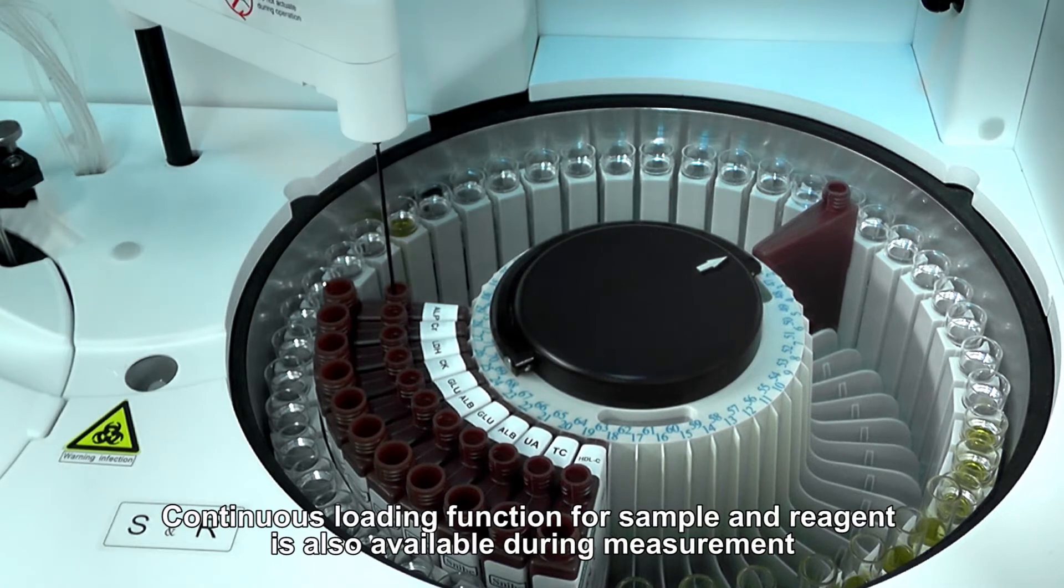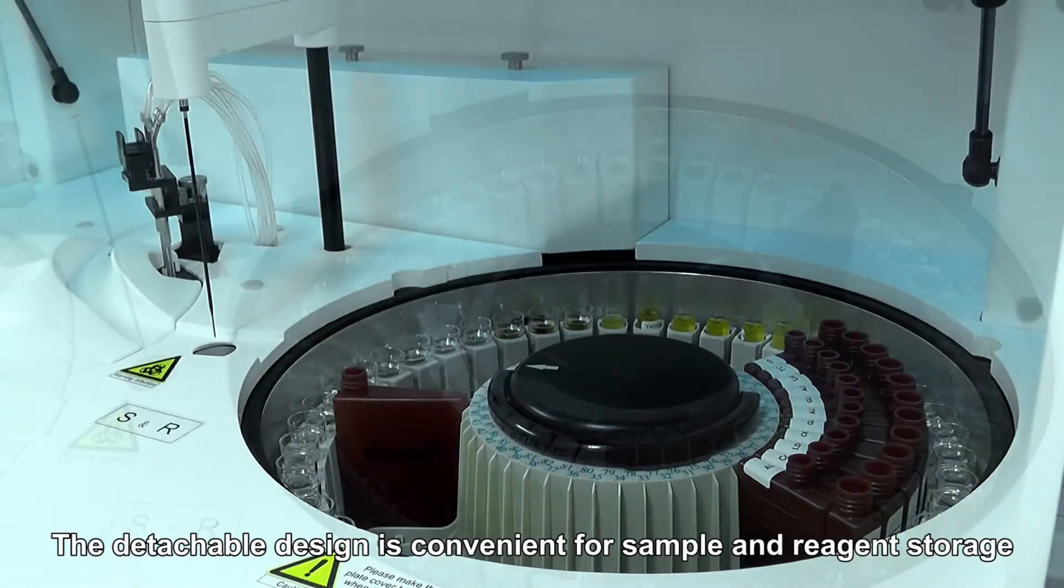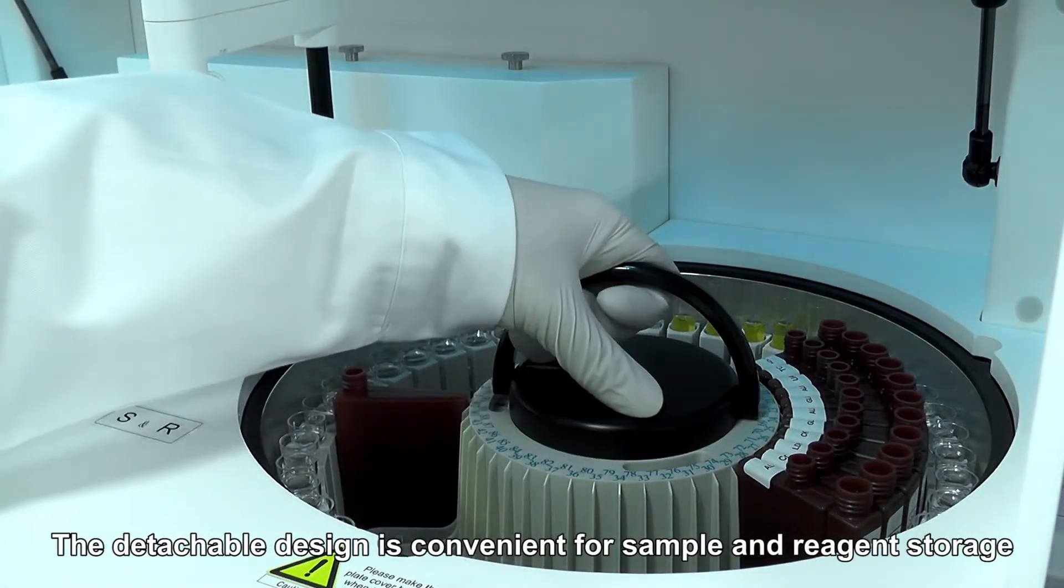Continuous loading function for sample and reagent is available during measurement. The detachable design is convenient for sample and reagent storage.